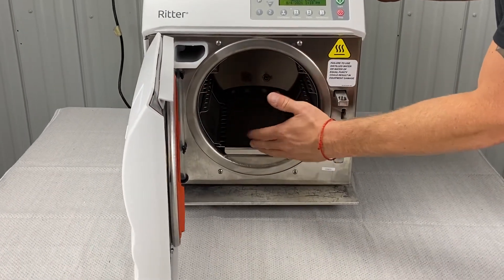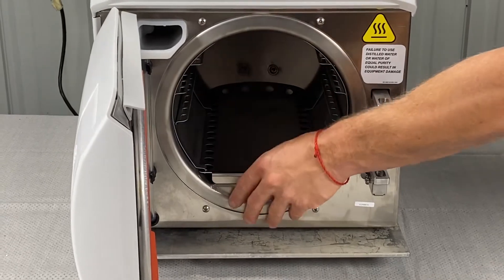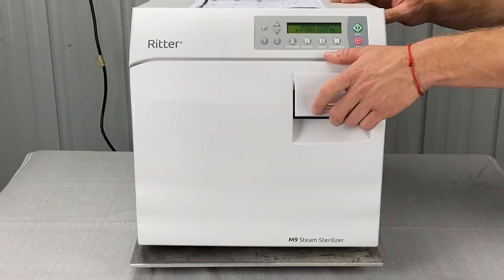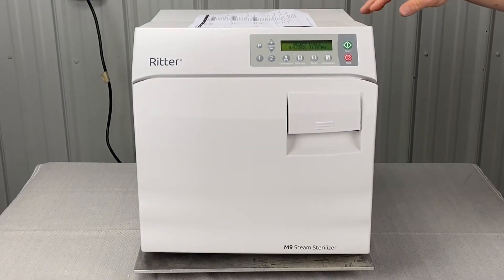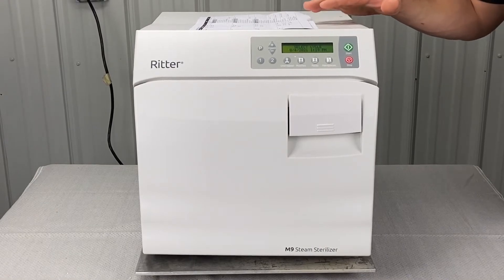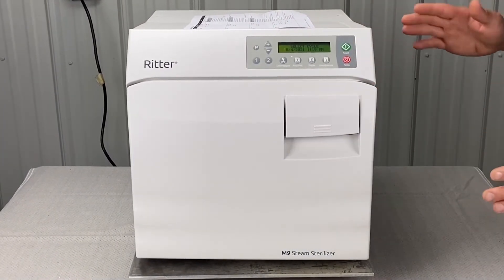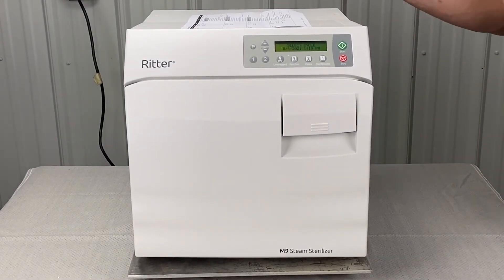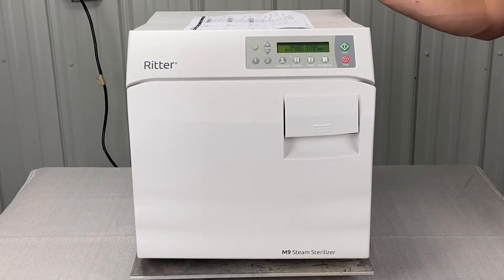Also check the tray plate, rack, and trays — you don't want them pushing out farther than the chamber itself, as that could cause leaking. Also verify that your sterilizer is level on a flat surface. If you're unsure, give us a call and we can walk you through how to make sure your shelf is level.